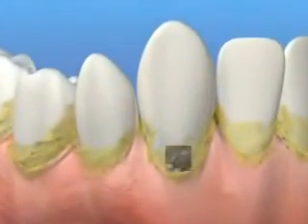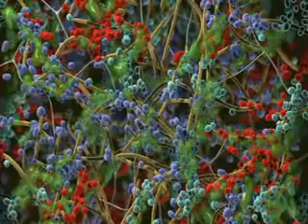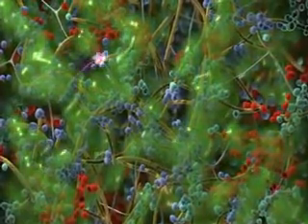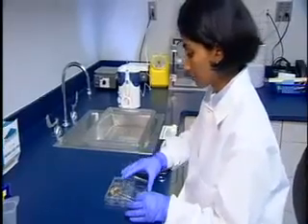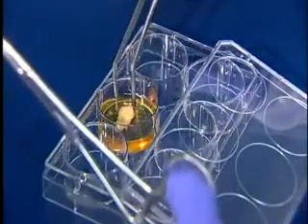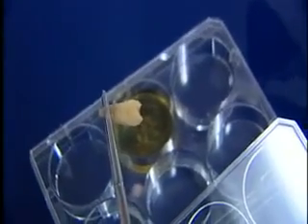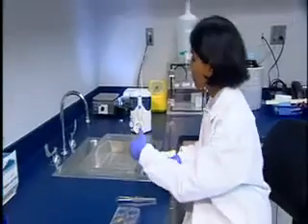In recent years, much has been learned about plaque biofilm — a community of bacteria embedded in a secreted extracellular matrix that adheres strongly to the surface of the tooth. We've been studying biofilms now for 40 years, and dental biofilms intensively for the last four or five years, and quite clearly they're very recalcitrant biofilm, very difficult to remove — chemically difficult to remove and difficult mechanically to remove. The idea here was to pose the Waterpik Jet system with a very tough target, in which we have biofilm accumulation over years of neglect.